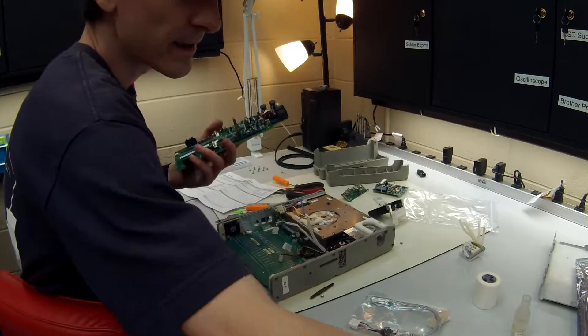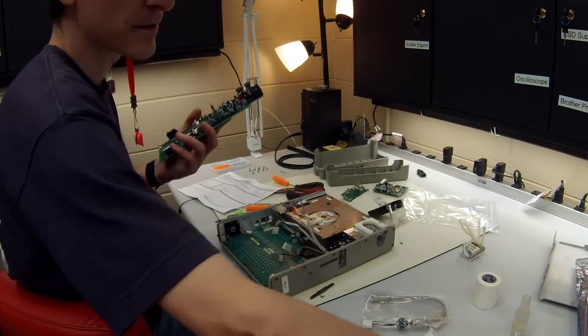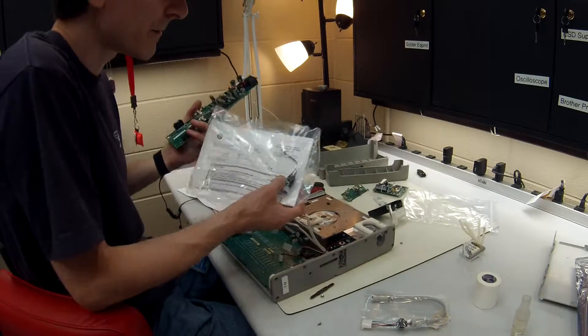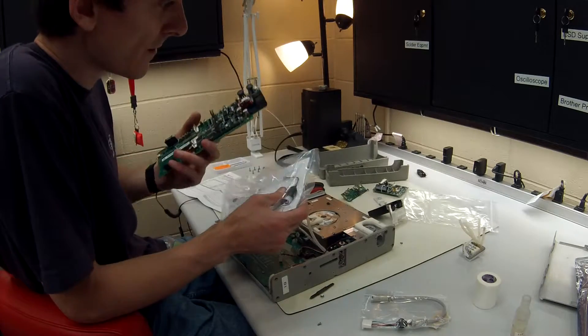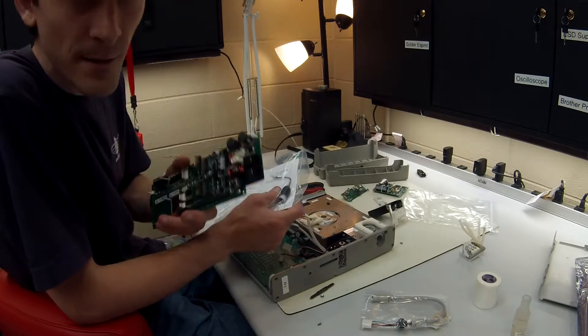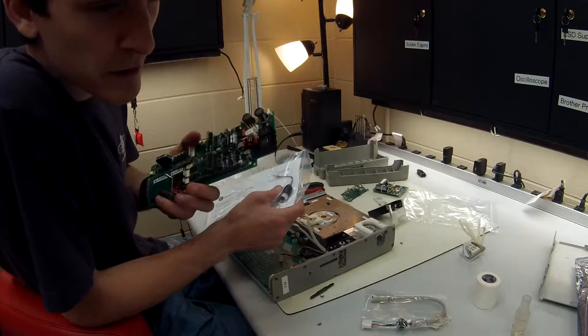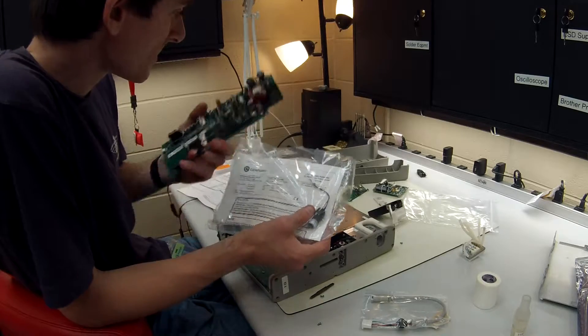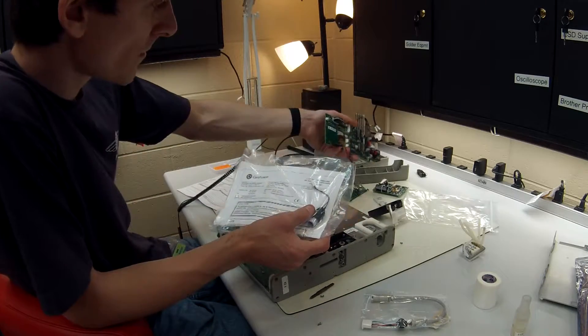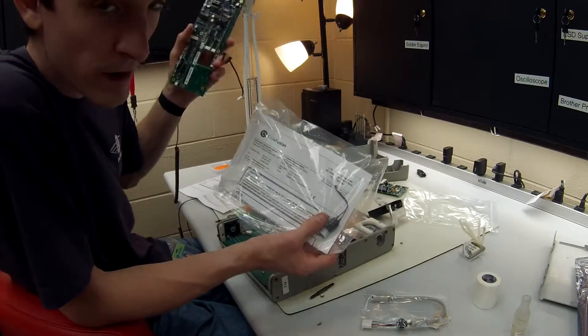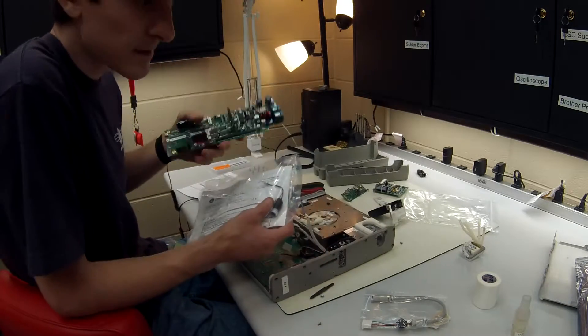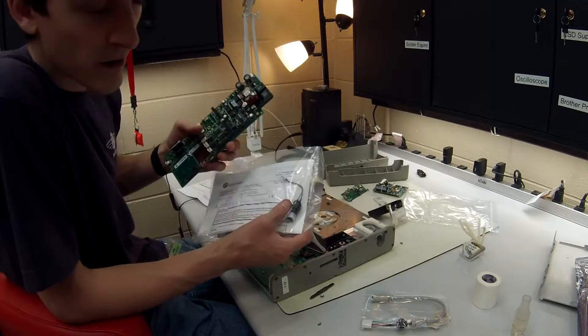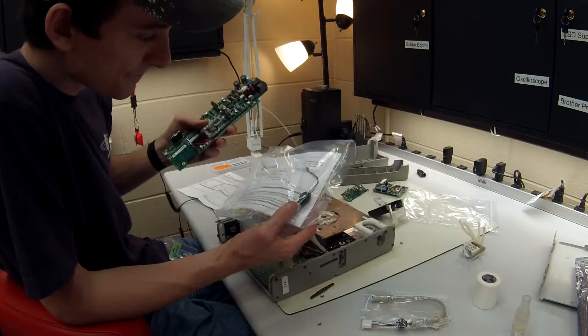But for this piece right here and the alarm sounder, those are the only ones in this PM that actually matter. Now if you start replacing parts, other parts like the analog board or motor board or whatever else, then those things usually have part numbers.